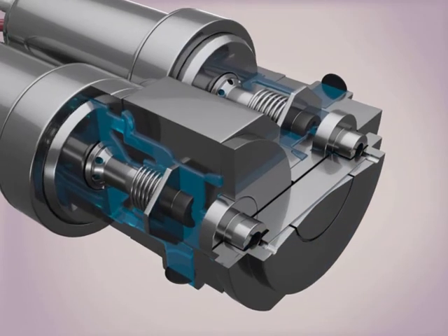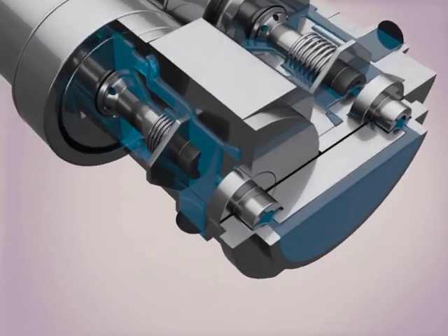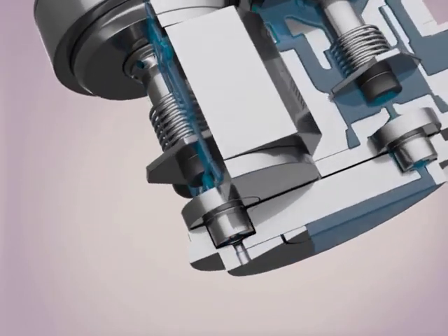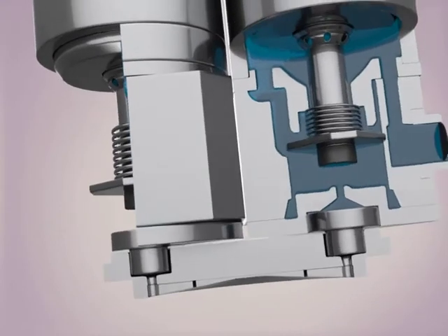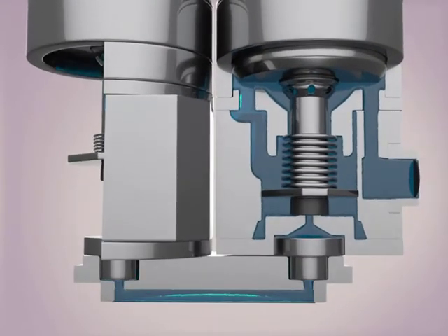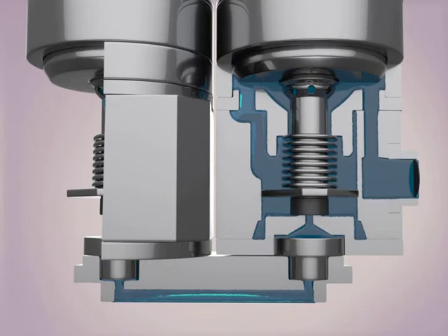To deliver the microbolus, the outlet valve opens and the medication travels through the FAV and pump stem. Here you can see the inlet and outlet valves actuating to fill the dosing chamber and deliver medication.